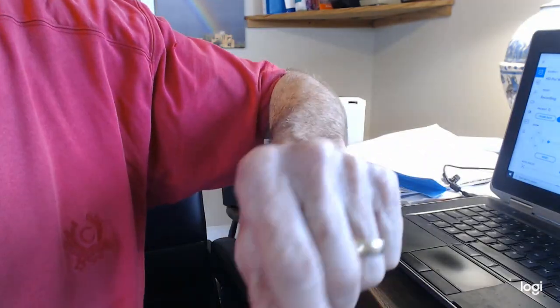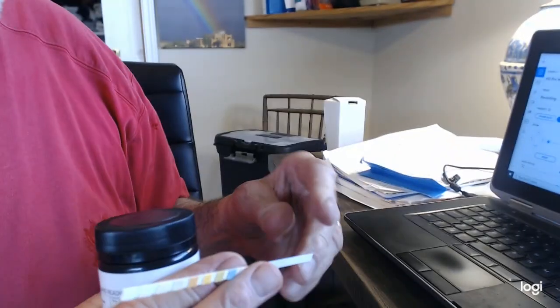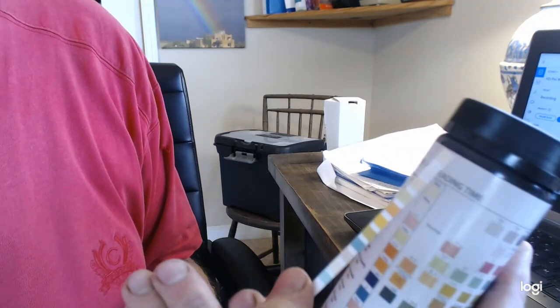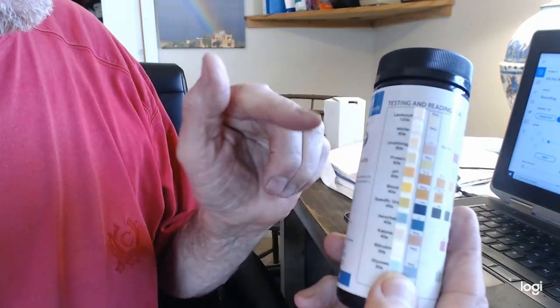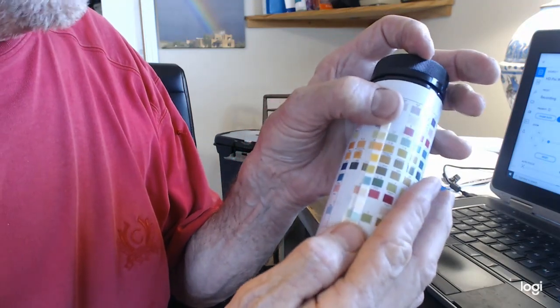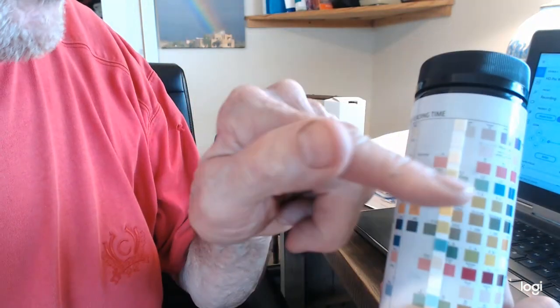I'll take one of these strips out. And you dip it in your urine sample. And I have some factory-made urine samples here that I'm using. Here's the sample stick, and it has those same values on it. And then you measure it up once it's wet. You measure it up next to the values on here, and you see if they are the right color. If they're that color or lighter, it means that you don't have too much of whatever that is. If it's darker, you move along here until you find the color that matches it the best. And then you say, okay, well, it's that high. My glucose is that high, or my blood is that much.